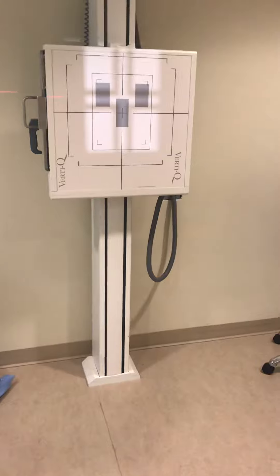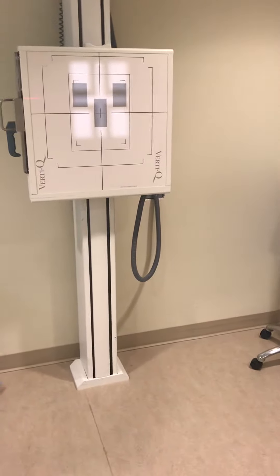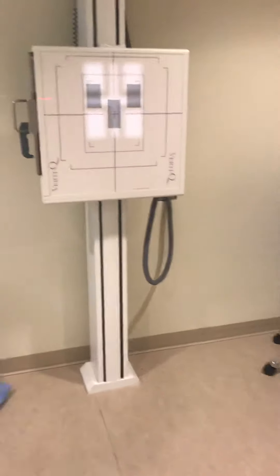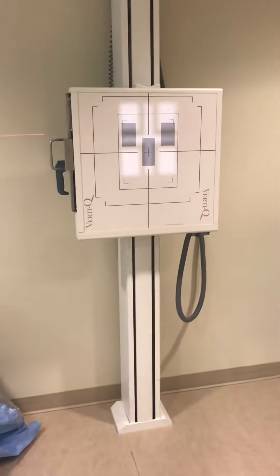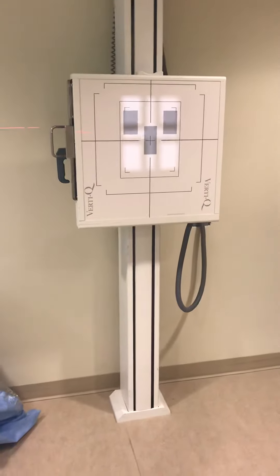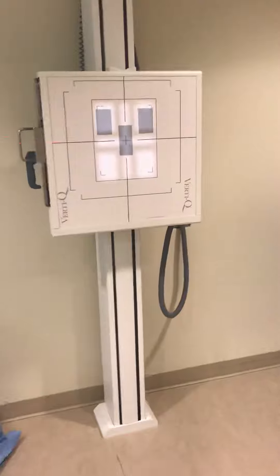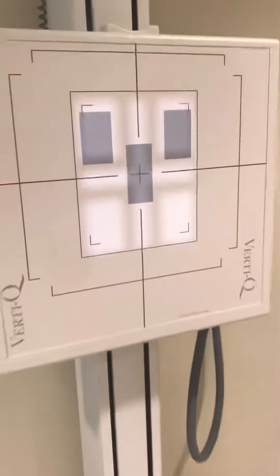I'm using those collimator knobs just like before to change the light field, and you can see how the laser light isn't lined up. So now I'm going to hit that vertical button and bring it down until it lines up with the black line, and you can see how the crosshairs are now in the center.